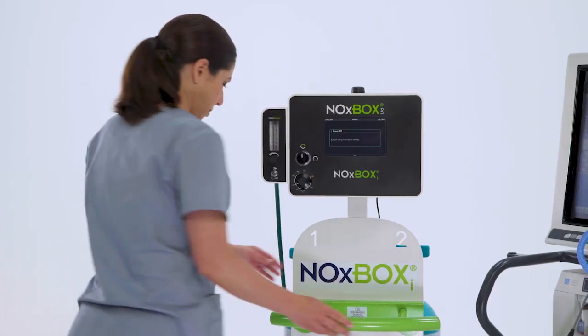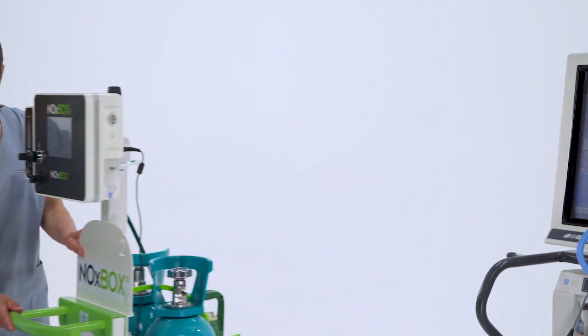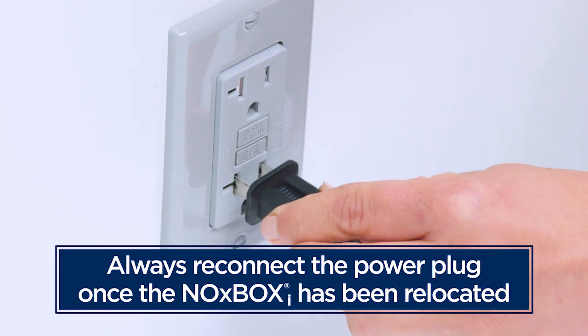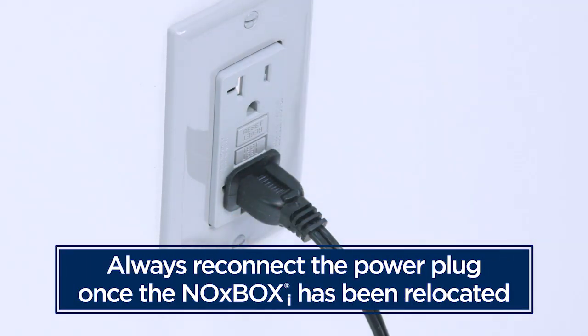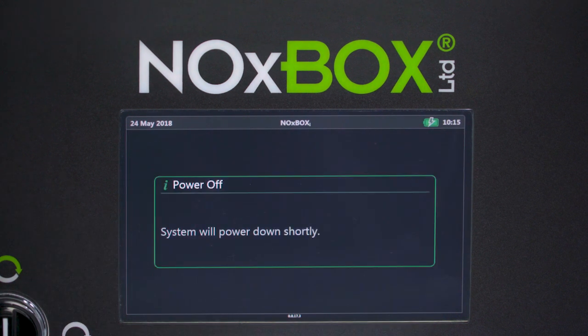If you plan to move the NOxBOXi system to another location, disconnect the power and the wall source oxygen if used. Remember to always reconnect the power plug to the wall once the NOxBOXi system has been relocated. The backup battery has up to 4 hours of backup charge when fully charged. Ensure all prompts are followed to complete the power off system shutdown.